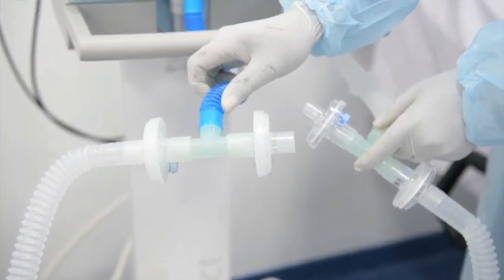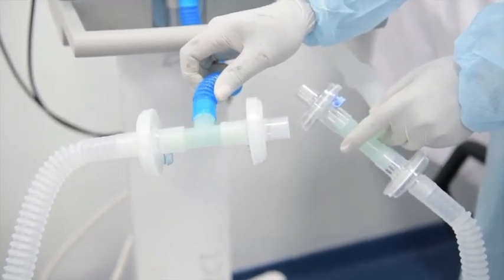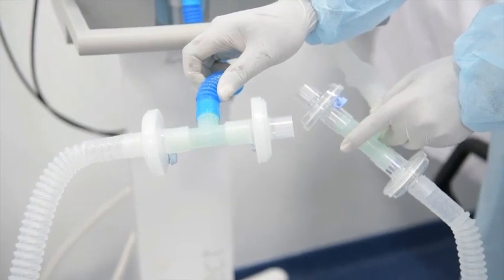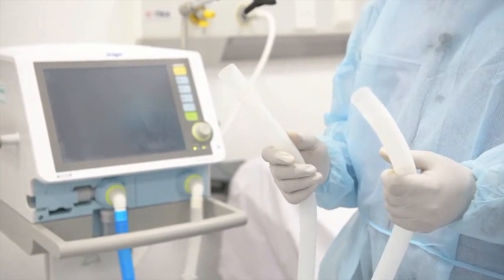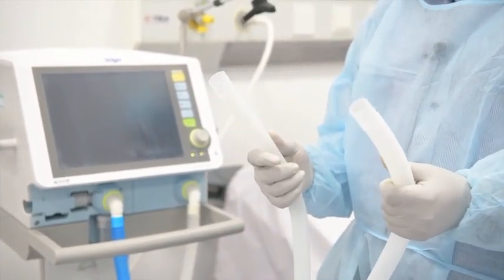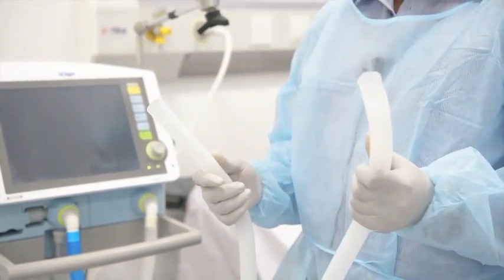So this is how one patient gets connected on the ventilator in this modality. In the circuit for a second patient, connection will be the same. One arm for inspiratory limb and the other one for exhalation limb.